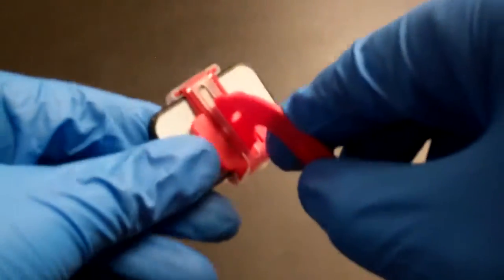This is a vertical bite wing holder. This would be the horizontal bite wing holder.